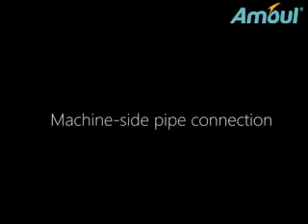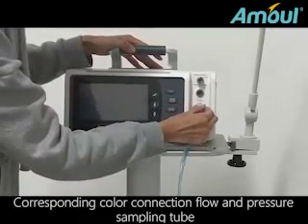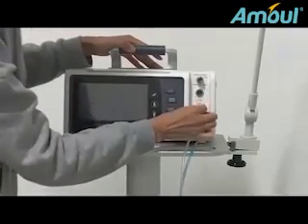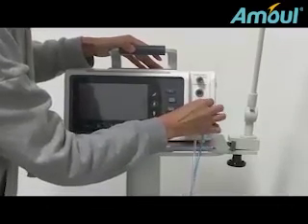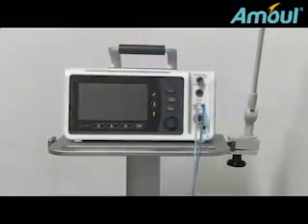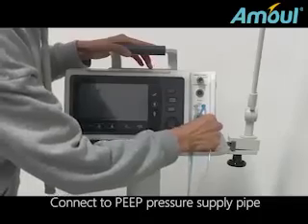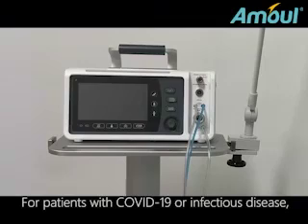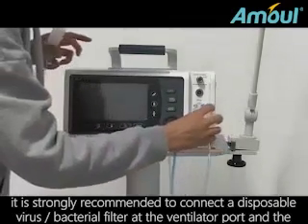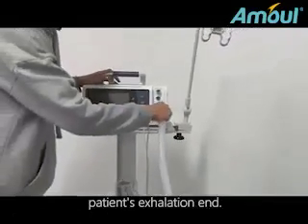Machine side pipe connection. Connect the flow and pressure sampling tube with the corresponding color. Connect to the PEEP pressure supply pipe. For patients with COVID-19 or infectious disease, it is strongly recommended to connect a disposable virus and bacteria filter at the ventilation port and the patient's exhalation end.